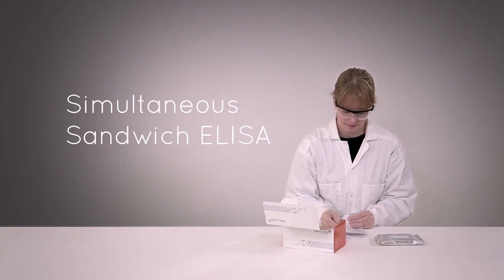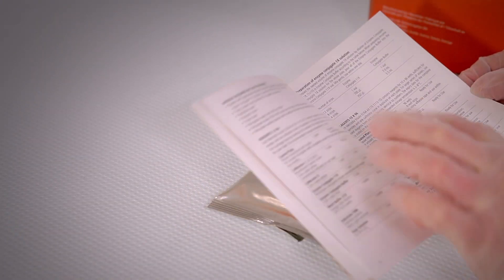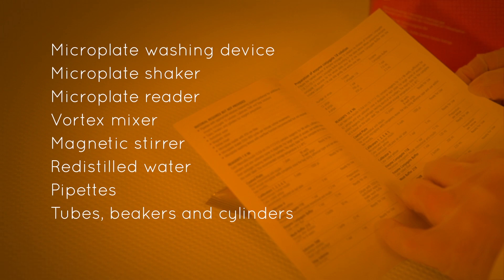Before you get started, please review the directions for use to become familiar with the specific kit instructions. Make sure you have all necessary equipment listed and in good working condition.